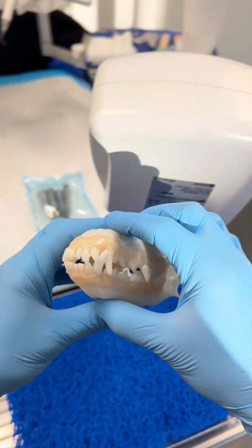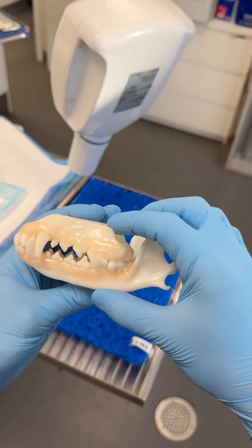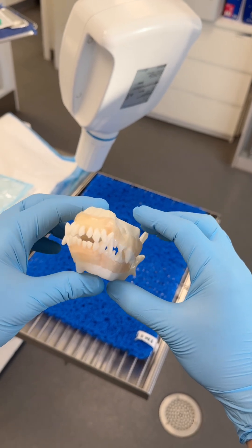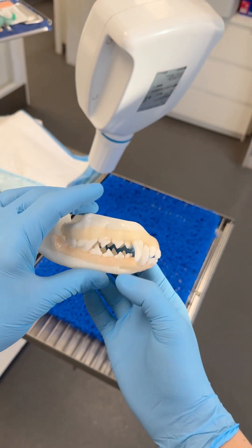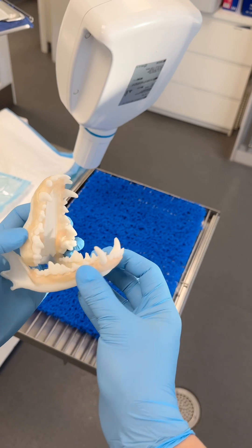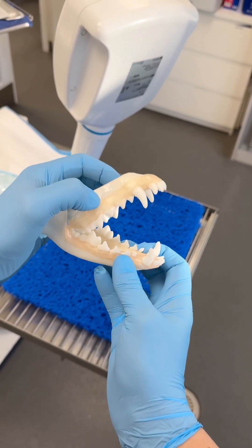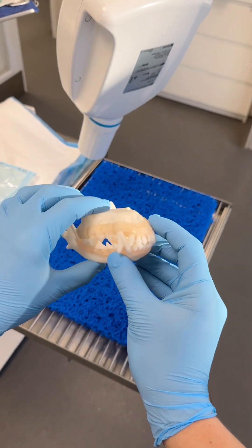So would I recommend trying this model? Absolutely. I think it's a fantastic way to learn x-ray whenever you have time, without depending on real patients. If you want to try this model yourself, comment 'model' and I'll send you the link.